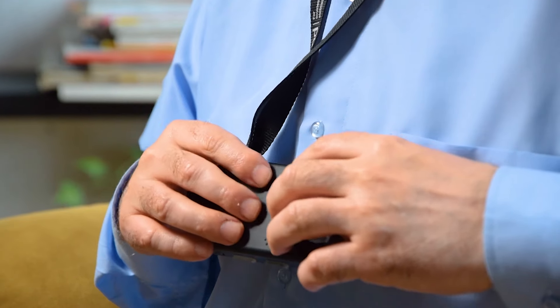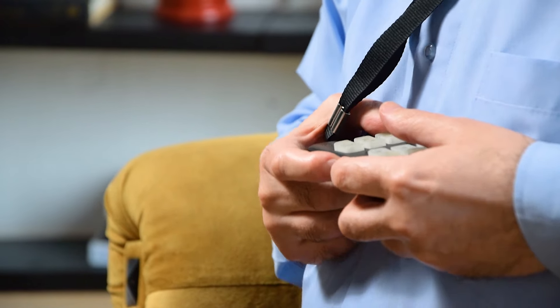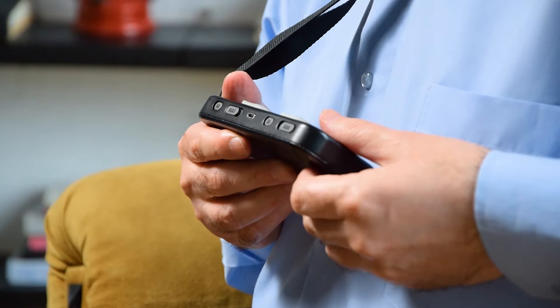Here is an unusual device called the hapti Braille communicator. It is created for communication with deafblind people. Unlike all other solutions, using hapti Braille almost does not require having knowledge of any special techniques. A deafblind person uses the Braille alphabet, which one usually knows, and the other person uses ordinary oral speech, which is recognized and transmitted to the communicator.